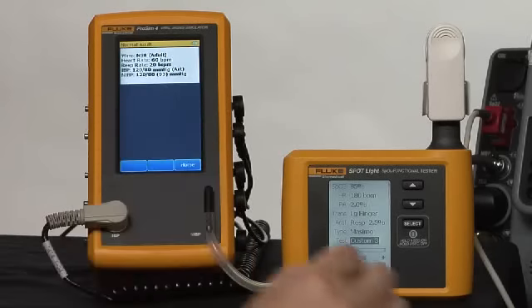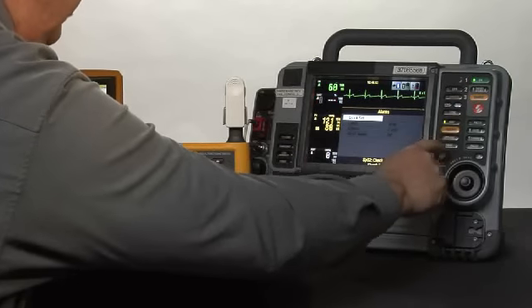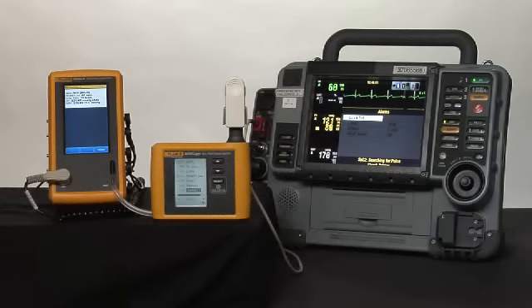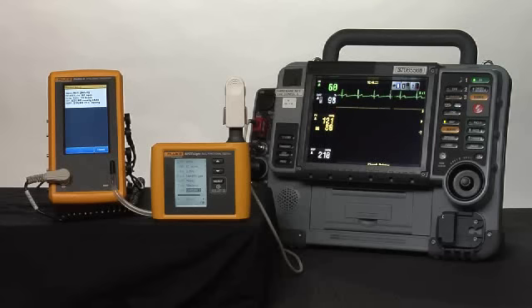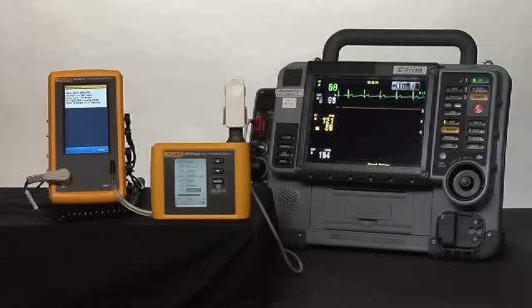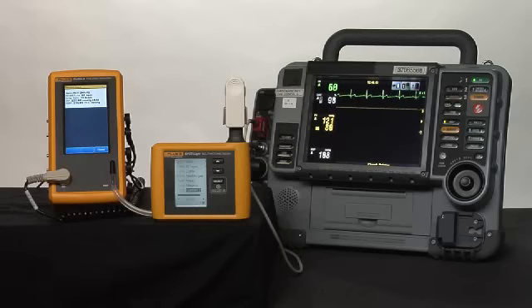We can silence those while we're waiting for the rest of the values to settle in and the NIBP reading to finish. We will now go back to ProSim 4 to a normal patient. On Spotlight, we'll pick Custom 2 and start another NIBP reading. The patient monitor will display its values. We're comparing those against the displays on both ProSim 4 and Spotlight, so that we have our waveform — normal sinus rhythm, a heart rate of 60, a respiratory rate of 20, an IBP invasive blood pressure of 120 over 80, and an NIBP of 120 over 80 with a mean of 93.